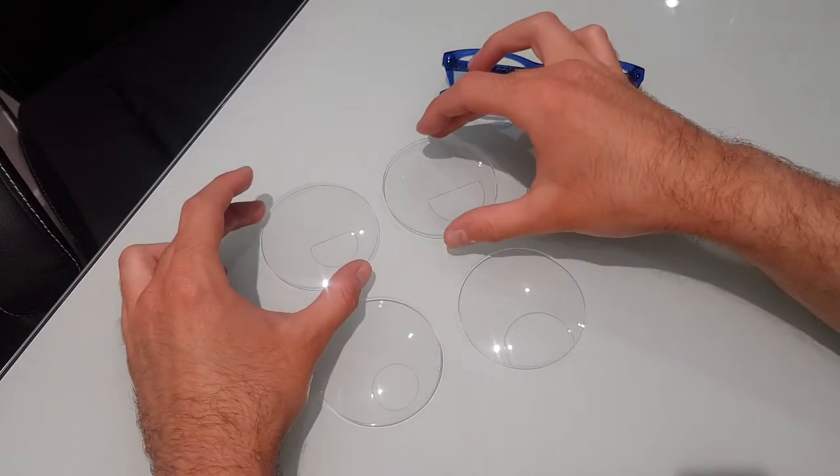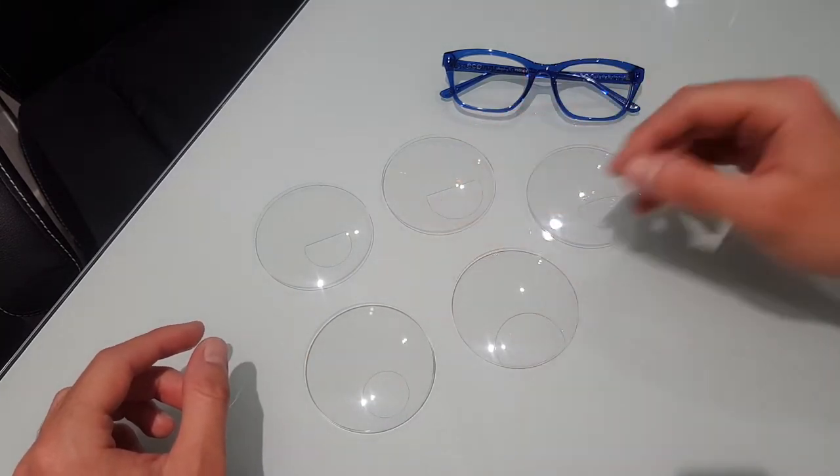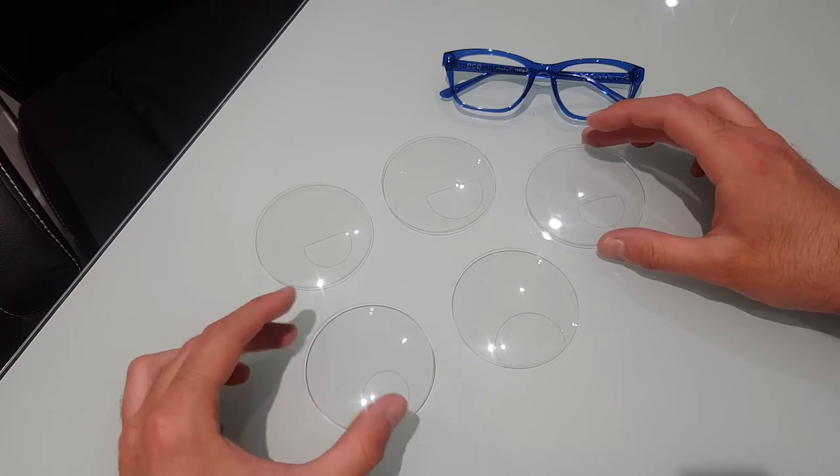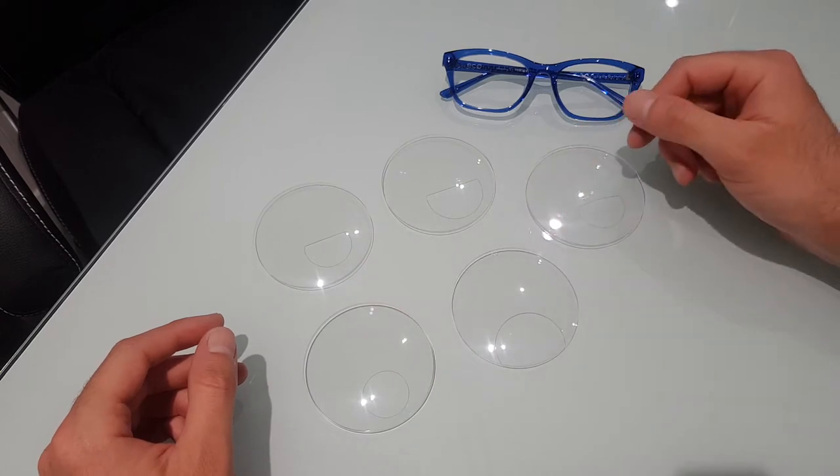Hi there, Colin here from Precision Optics Eyewear. I'm just going to show you this quick video to run through five different types of bifocal that are available. These are probably the five most common bifocals you're going to come across.